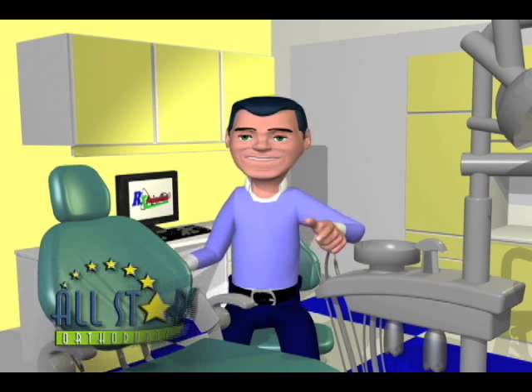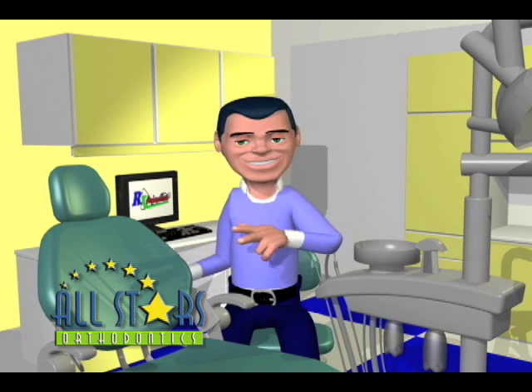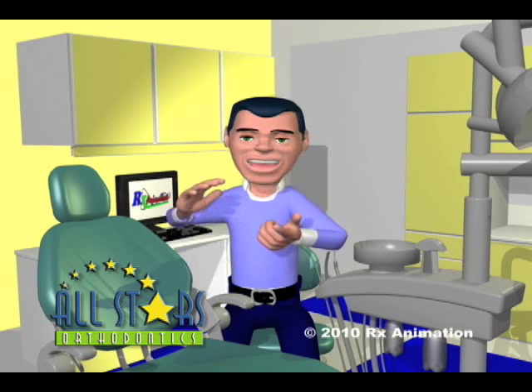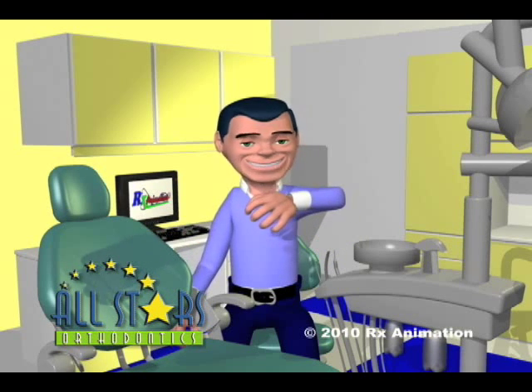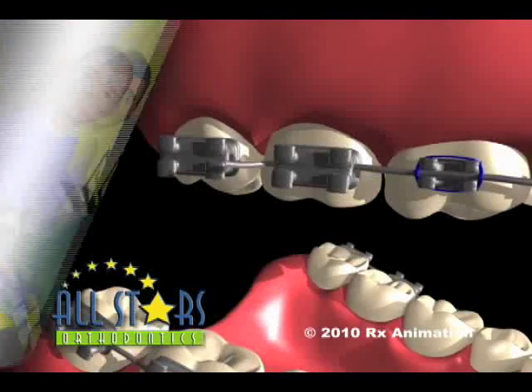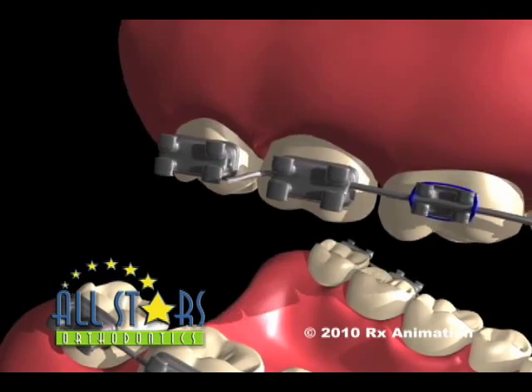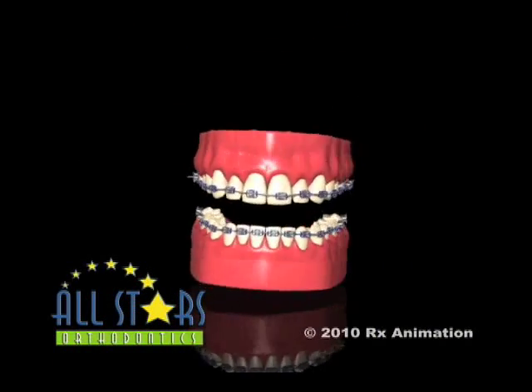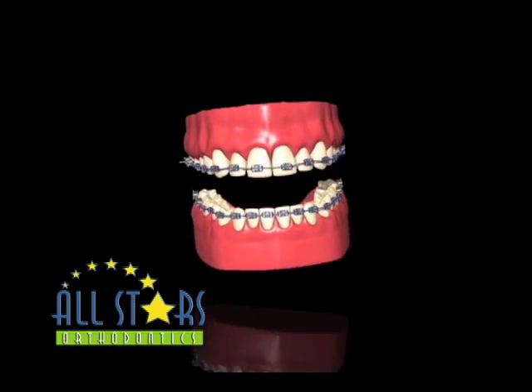When you get your braces, I start the movement of your teeth with a very light flexible wire to slowly begin alignment. These wires are so flexible that sometimes chewing normal food or even biting down in your sleep can cause the wire to slide out of the back brace. But here's an easy solution — this long loose wire can certainly be uncomfortable to your tooth, cheek, or gums, but fear not because the emergency solution is so very easy.